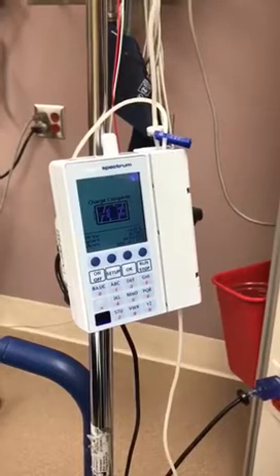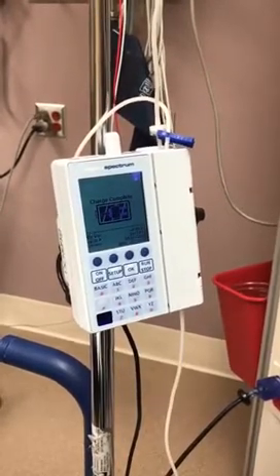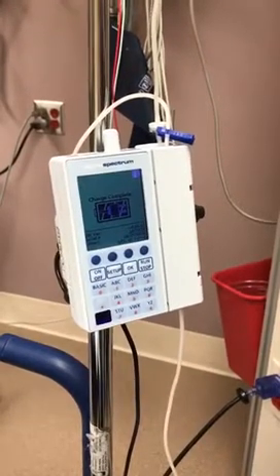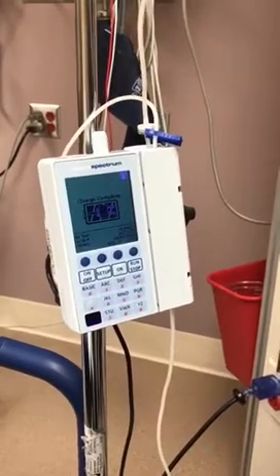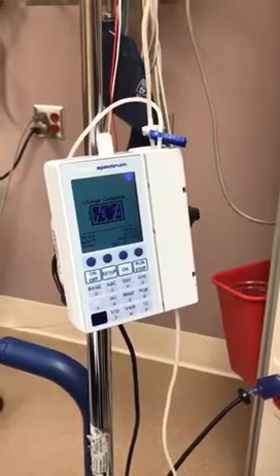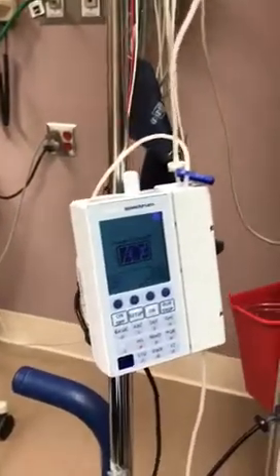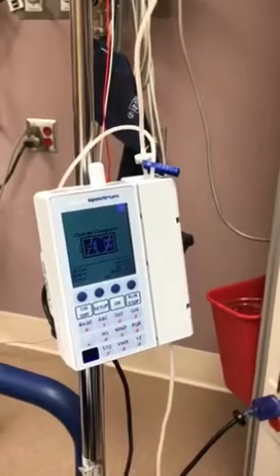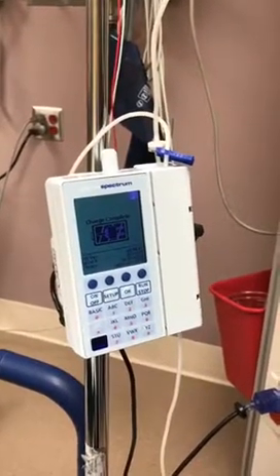So, due to our worldwide crisis, several key medications related to intubation and sedation are in short supply. As a result, we are encouraged to be resourceful by avoiding the use of the 200 milligram per 20 ml propofol vials for bolus dosing, and instead bolusing directly from the 1000 milligram per 100 ml continuous infusion vials.